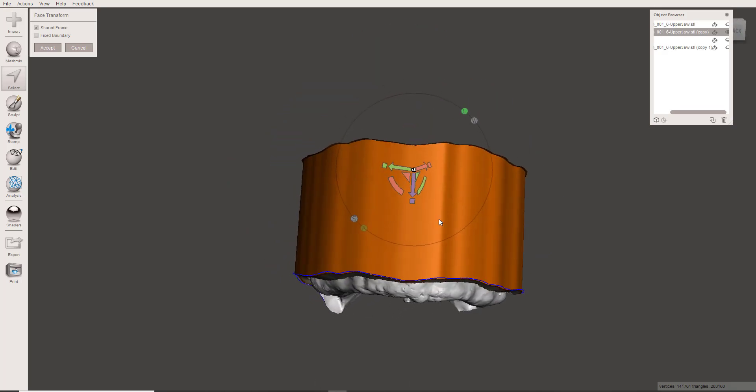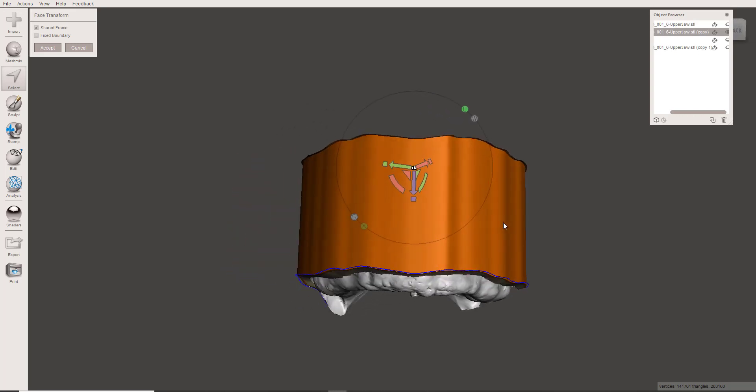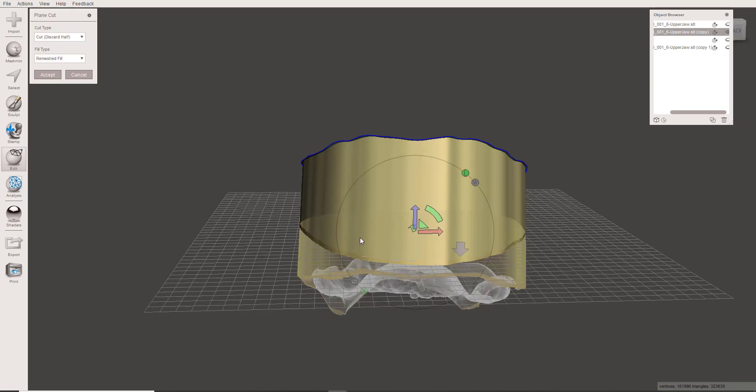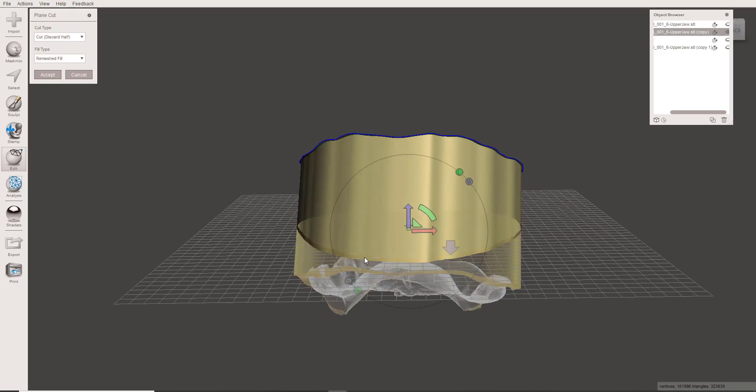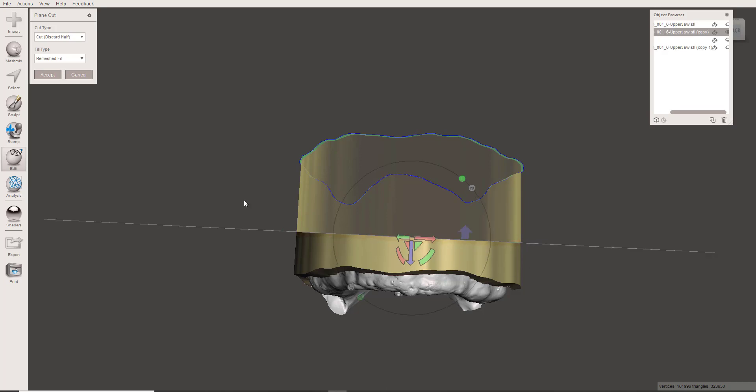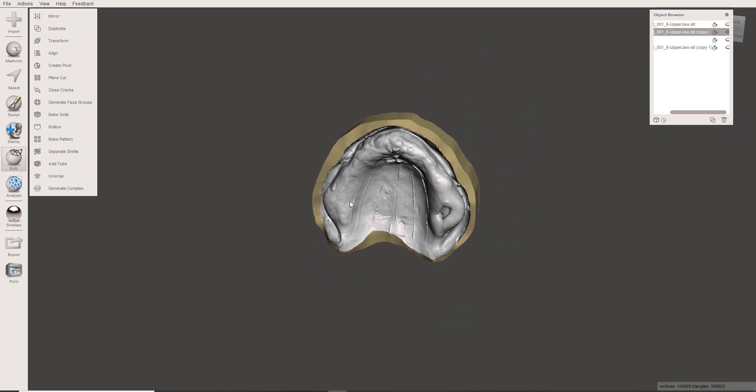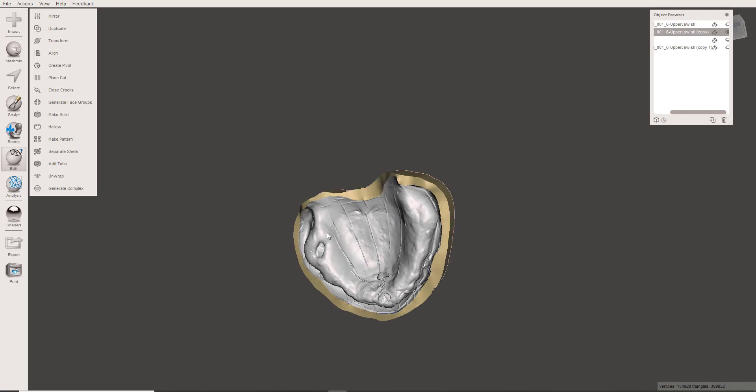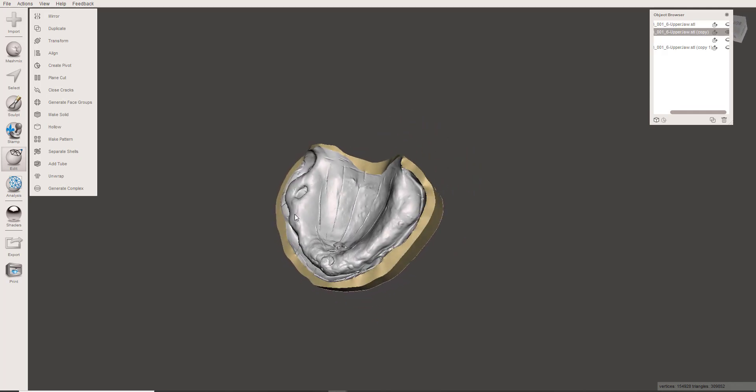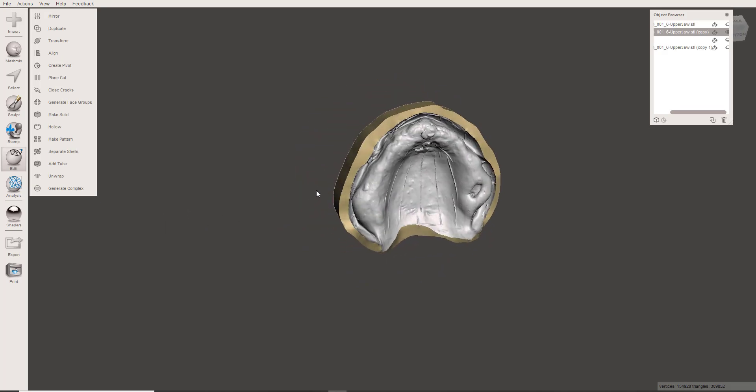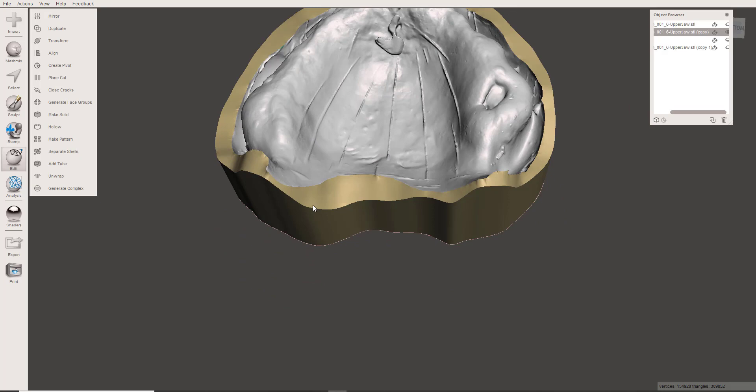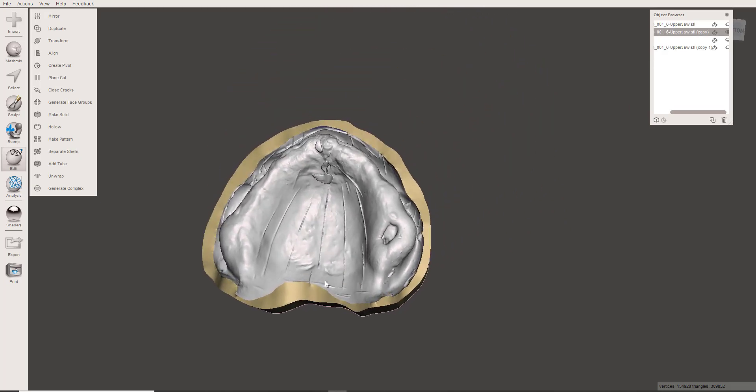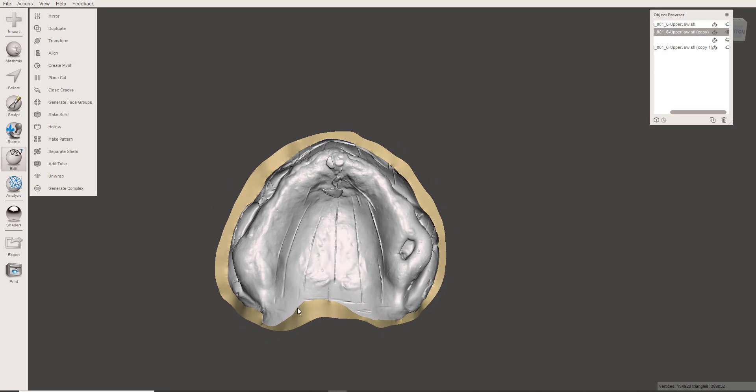I'm going to look at the model and make sure that it's parallel to the ridge. That looks great. And then you could plain cut it to get a closed model should you need one. So once again, I do try to do this parallel to the ridge itself. So now you have a completed master model. This would print well. This would be more conducive to really anything you're going to do with digital dentures, as well as any kind of analog workflow. If you needed to conventionally process on this or whatever, this is going to be a much more useful model. So that is how I put bases on removable denture models without losing any of my boundaries.